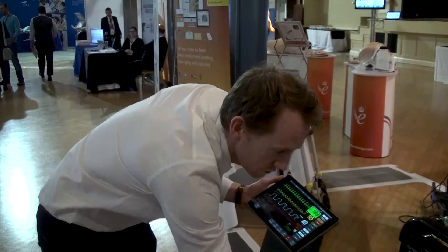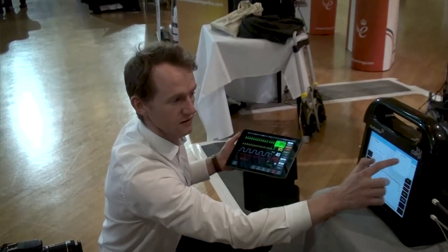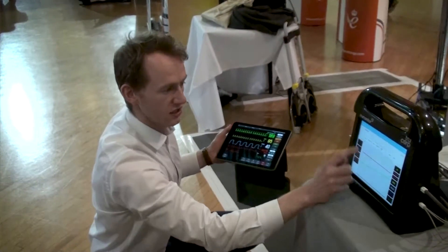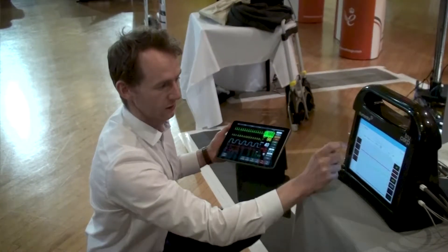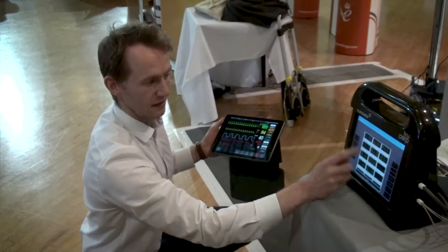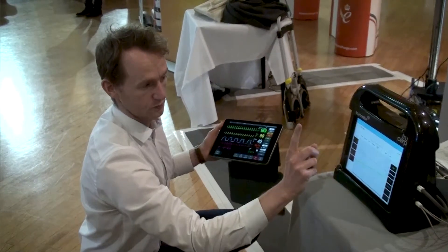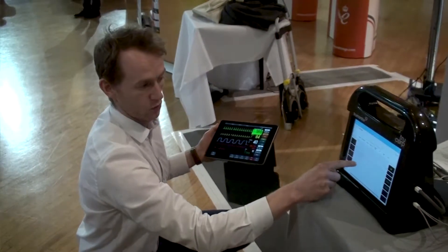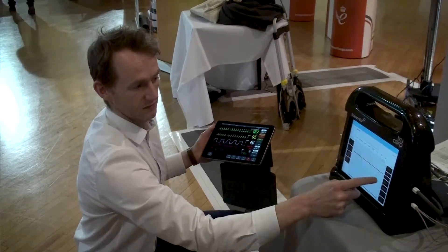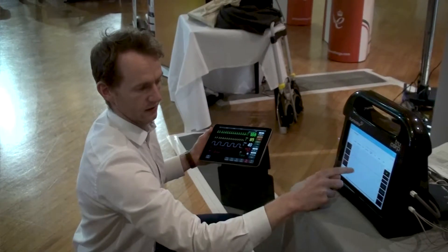You can also set a duration — 1 minute, 2 minutes, 3 minutes, up to 10 minutes. I can change everything here to build a really complex scenario. There are over 30 different types of ECGs and multiple types of blood pressures and heart rates to pick from. Everything is intuitive — if I make a mistake, I can just press it and redo it.